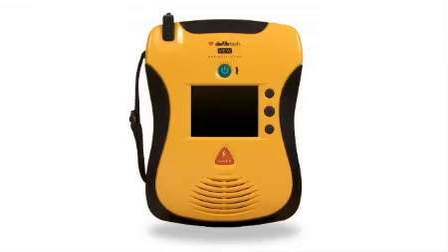The DefibTech name has become synonymous with dependability, creativity, and trust. While we've won awards for design and innovation, we've never lost sight of our true mission, saving lives. With the DefibTech View, we've taken the AED and made it even better, by making it easier to use and easier to maintain.